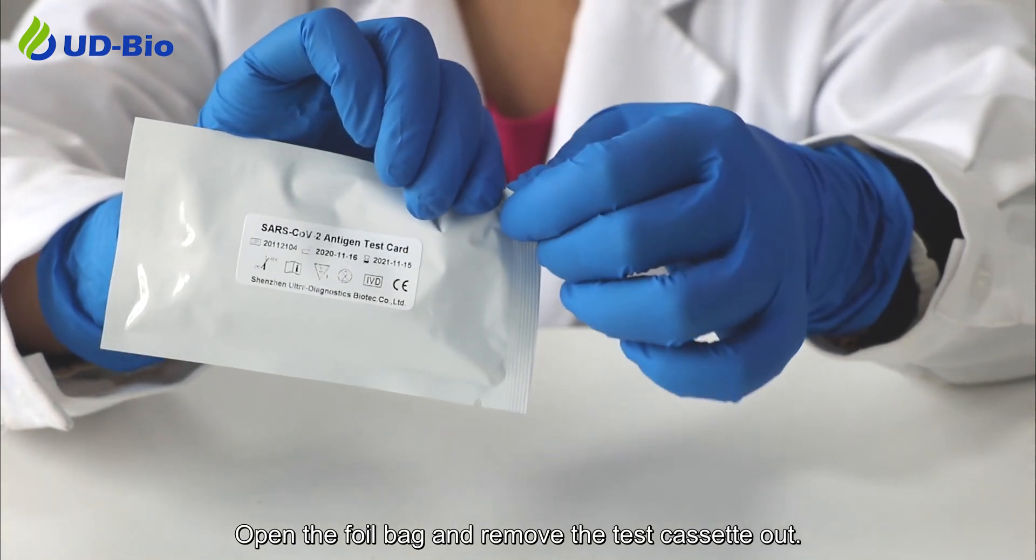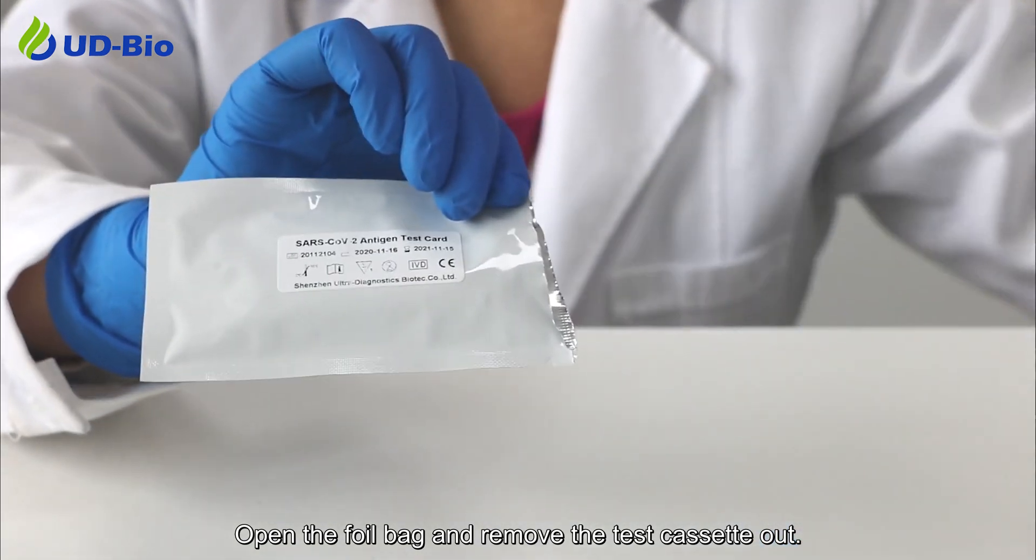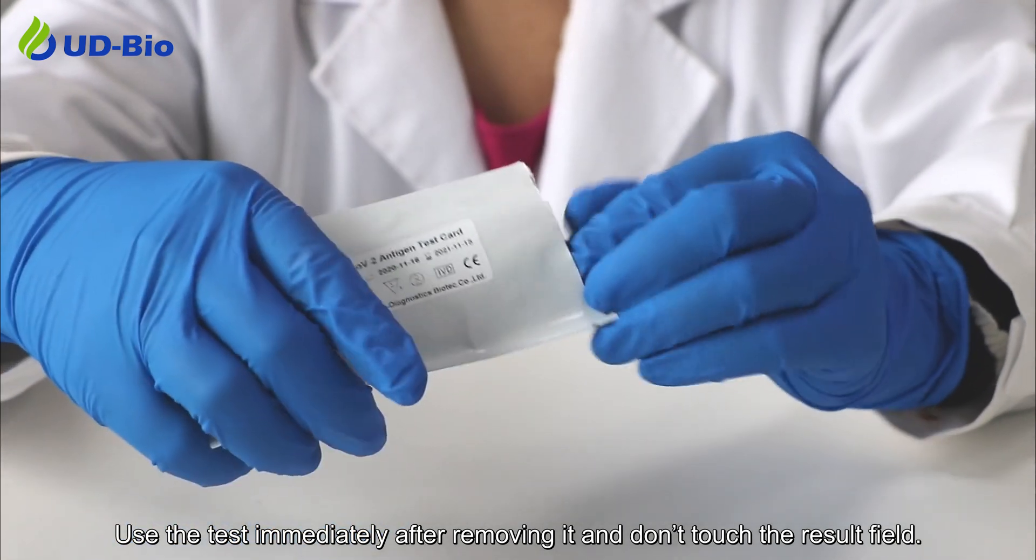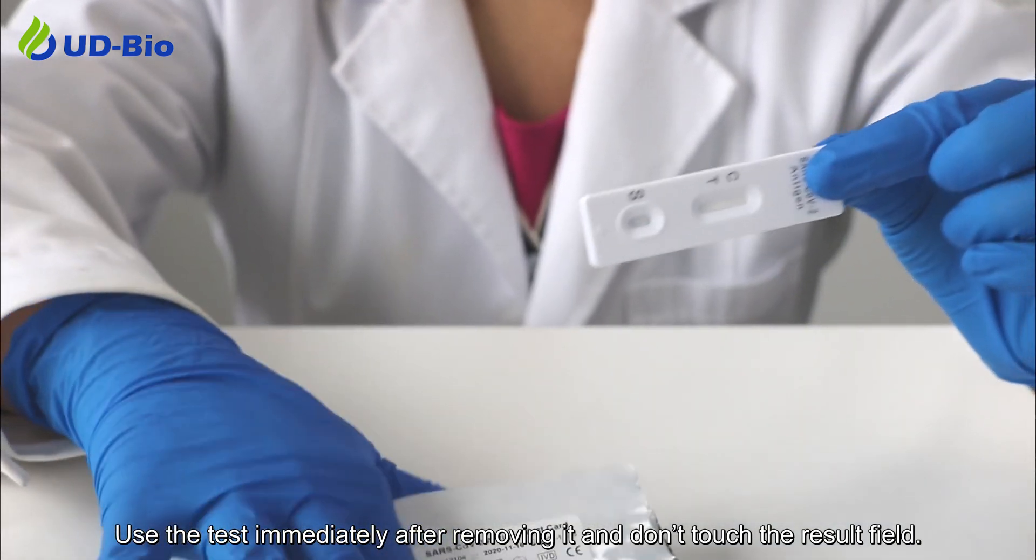Open the foil bag and remove the test cassette. Use the test immediately after removing it and don't touch the results field.